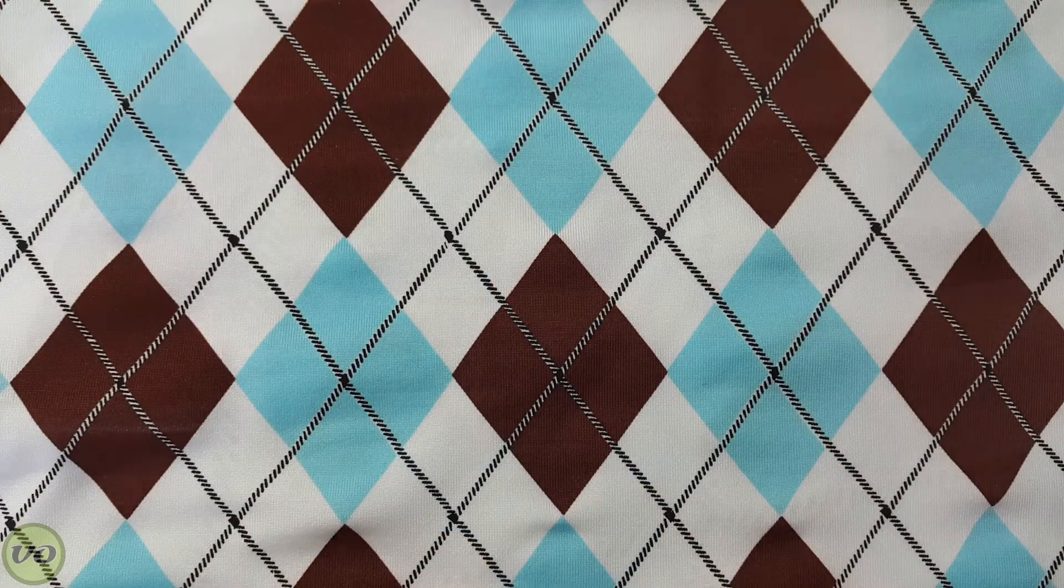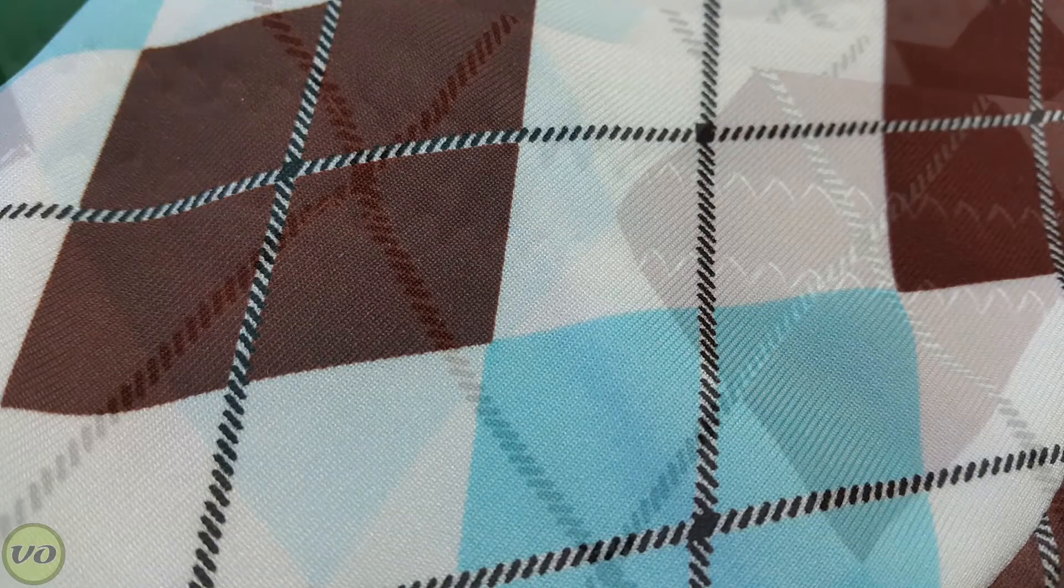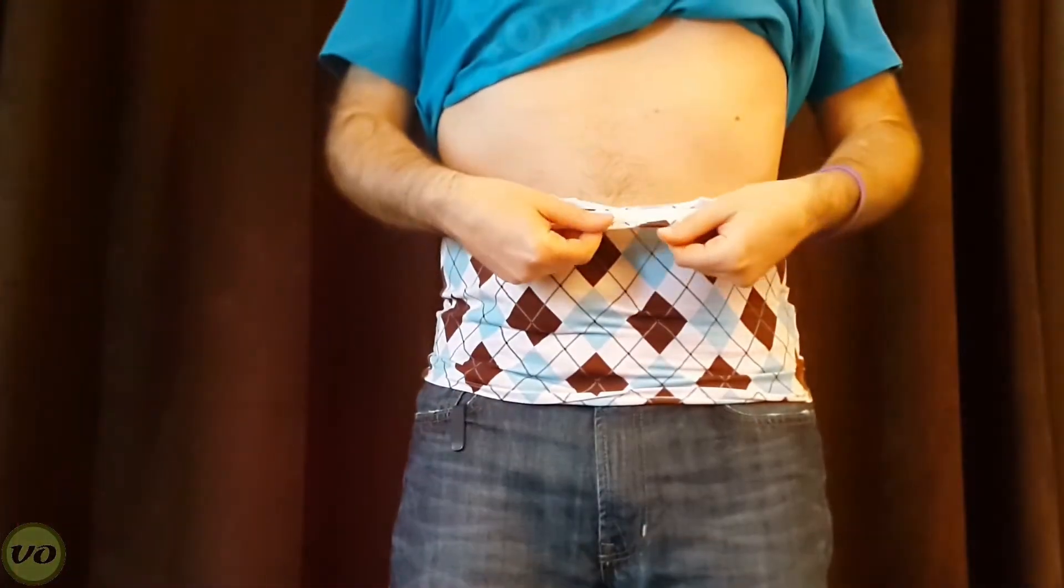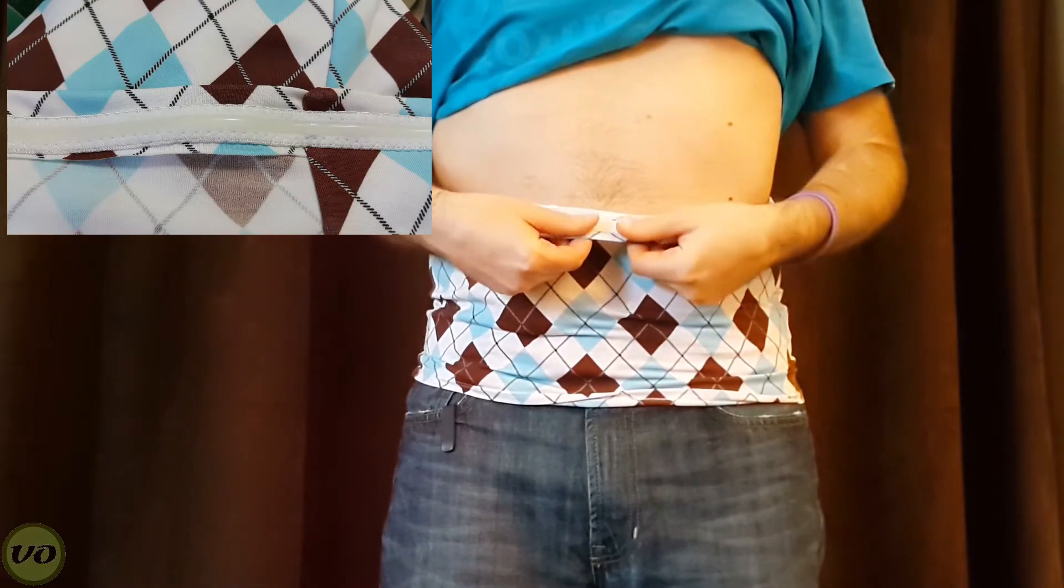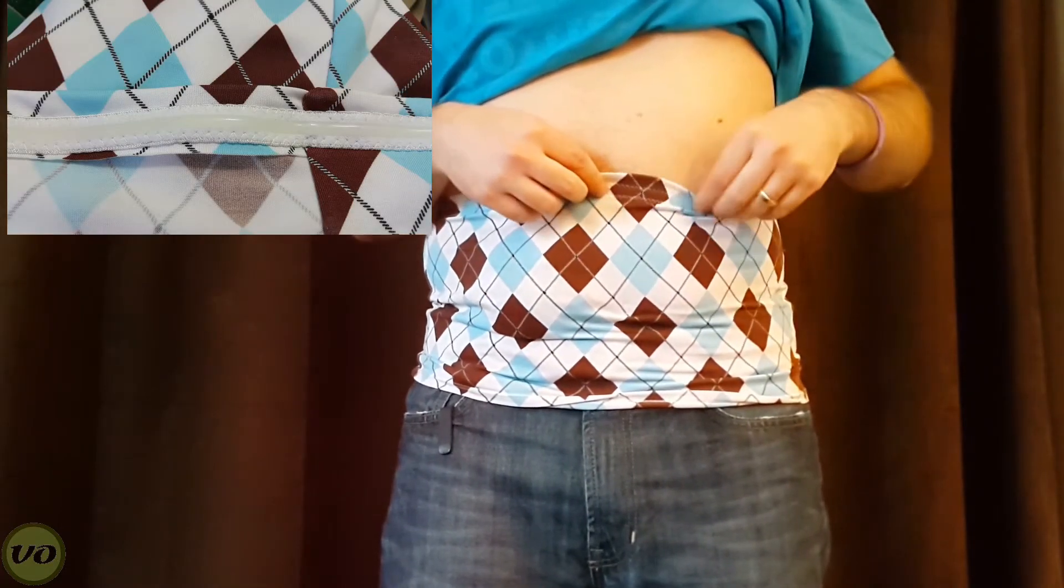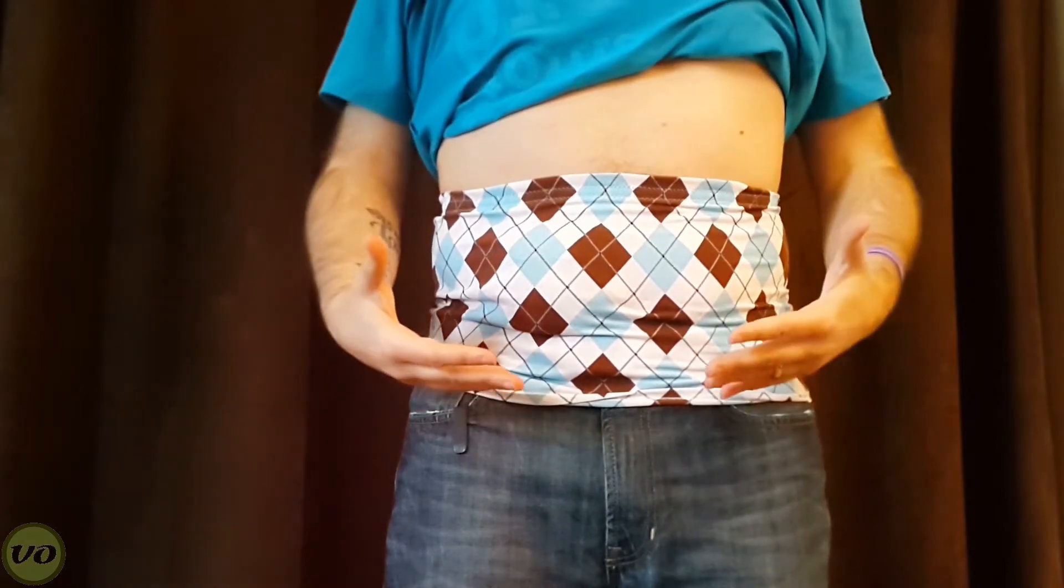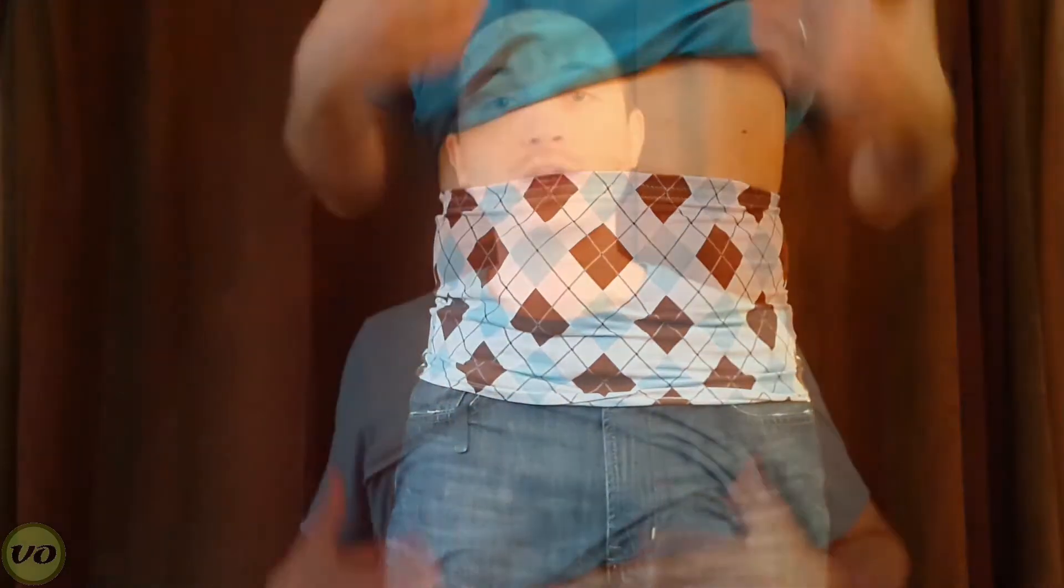Now this wrap is made of a stretchy material, so it will conform to all kinds of body shapes. And it also comes with a rubber band here. Now that band really helps to grip onto skin so that the wrap doesn't slide down. I know that's a common complaint for a lot of ostomates, especially ostomates that might have a different body shape. So that might be women, it might be someone who might be a little overweight. A lot of the times it's uncomfortable to wear wraps and they'll have it slip around and they generally don't end up wearing them. So the band is a really cool thing to have on there. It's never caused any issues for me. It's quite comfortable actually.